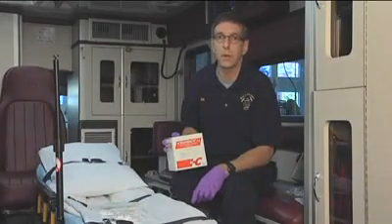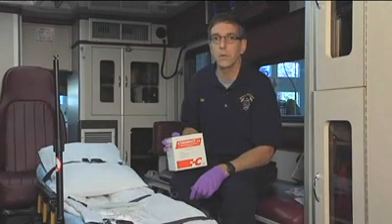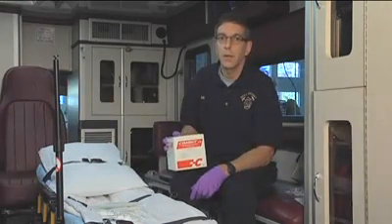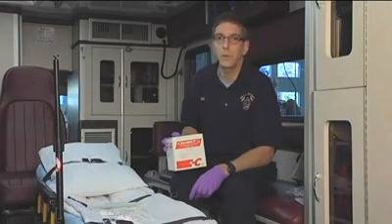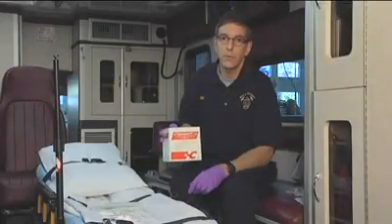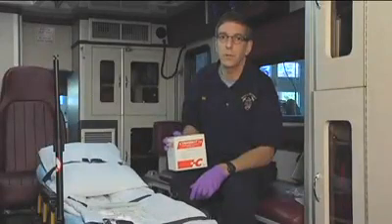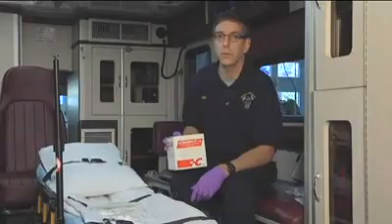While there are other antidotes on the market, none of those are appropriate to give to the smoke inhalation victim. So you're going to end up giving this kit in an ALS setting to a patient, probably who's in cardiac arrest, in not the best of circumstances to have to work. So today I'll go through how to mix the drugs together, how to set up the kit and get it ready for administration when seconds count.